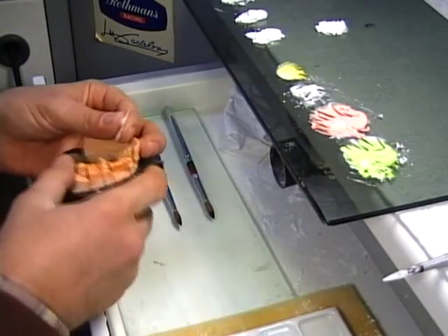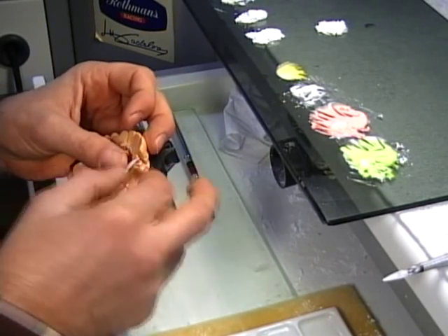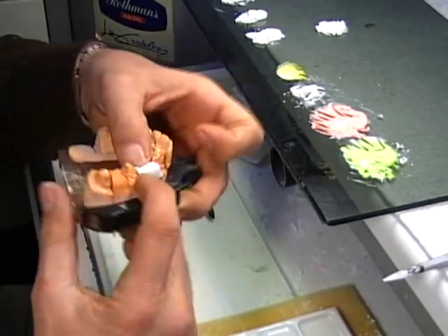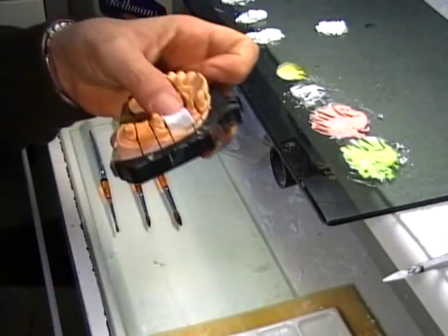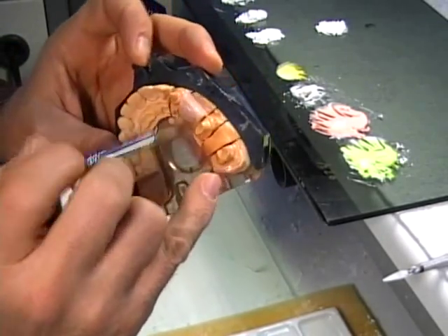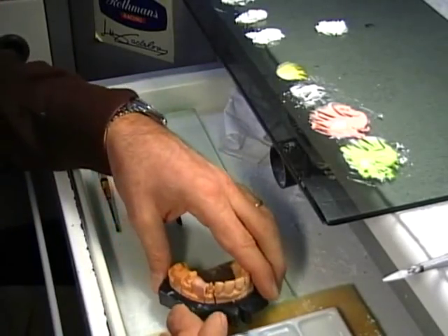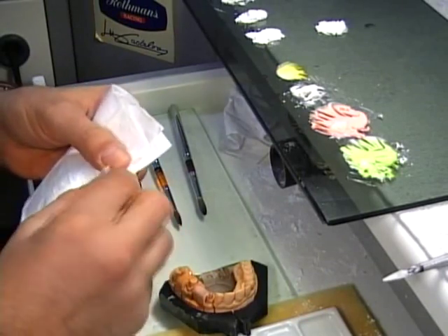Which I will use to put my porcelain over it, so it will not stick to the gypsum. You see, I have mottled around this edentulous area. Now again with my brush and some water, I just have it stick this way right here. Some people use oil, but I'd rather use water — water and tissue. Very inexpensive and it works.